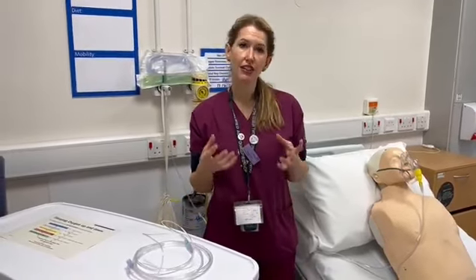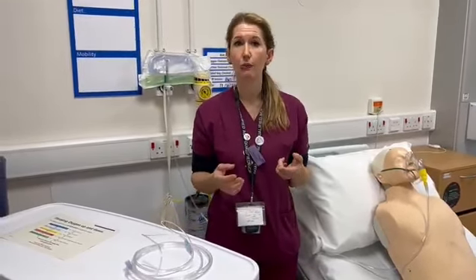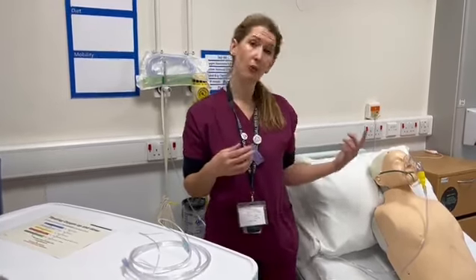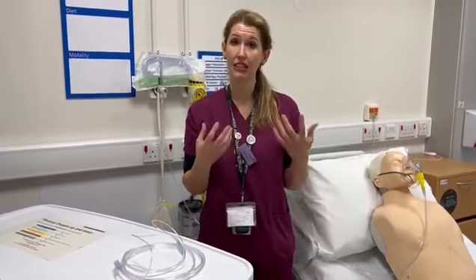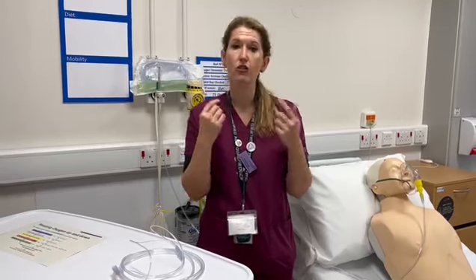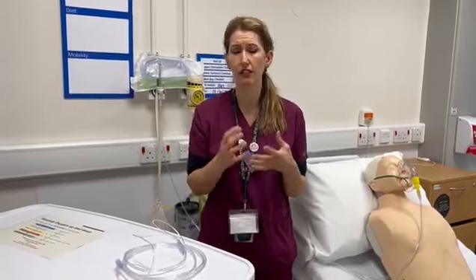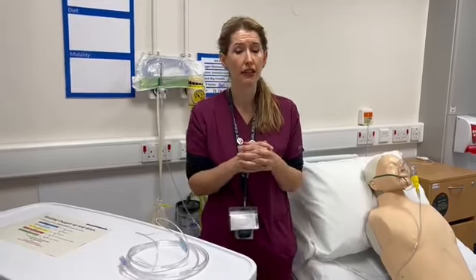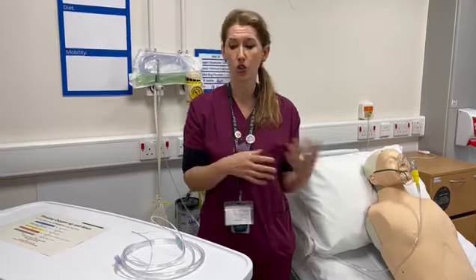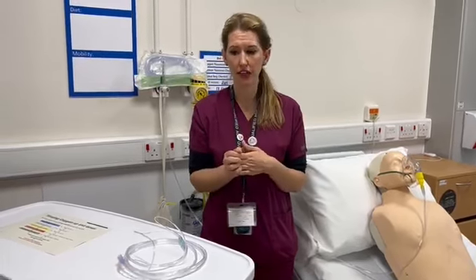Now the reasons that you might need to consider doing this is when your patient needs to eat and drink throughout the day, so you don't want to leave them without oxygen because they obviously need oxygen. If they're using nebulizers, then you can also entrain oxygen through nasal cannula, and also it's an alternative if your patient can't tolerate it, such as they get really claustrophobic. And so those are the conditions that we would be mainly thinking about. Do we need to switch our patient to nasal cannula?